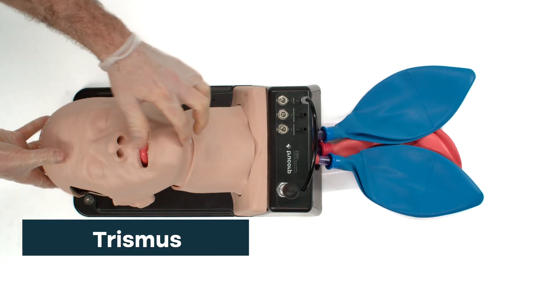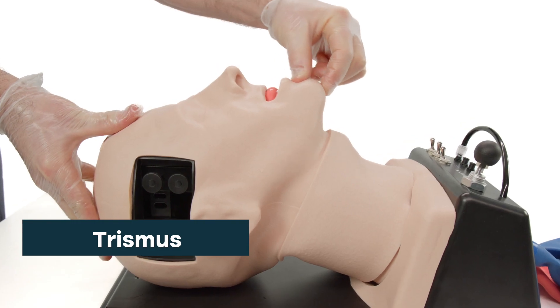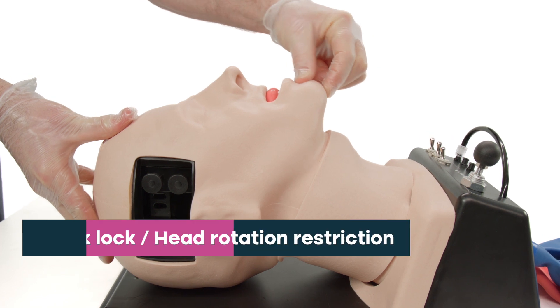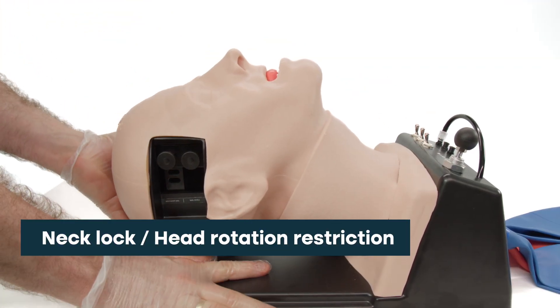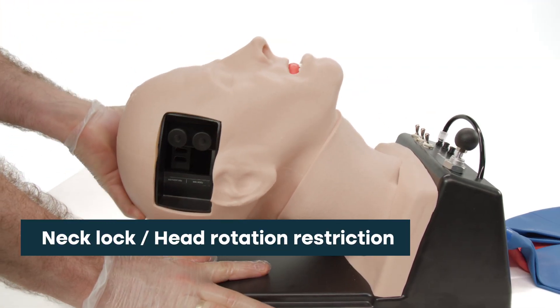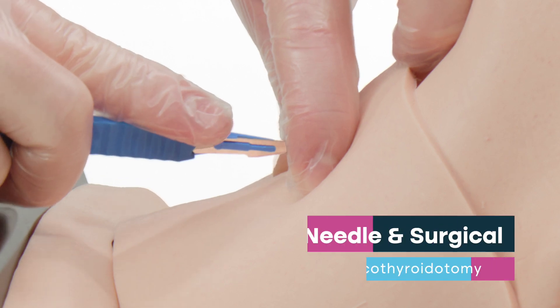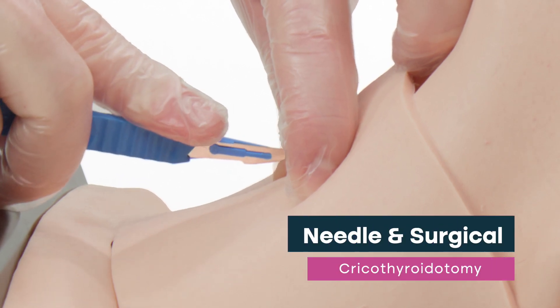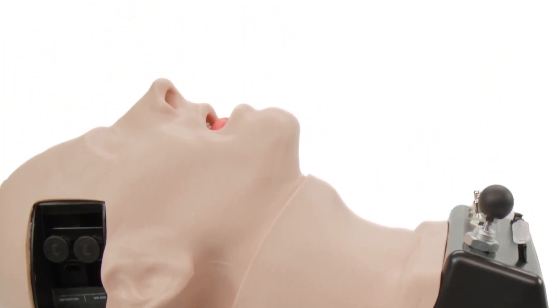Trismus — the ability to grossly restrict mouth opening. Neck lock and head rotation restriction. Needle and surgical cricothyroidotomy, and percutaneous tracheostomy.